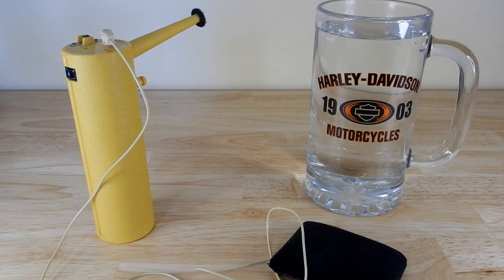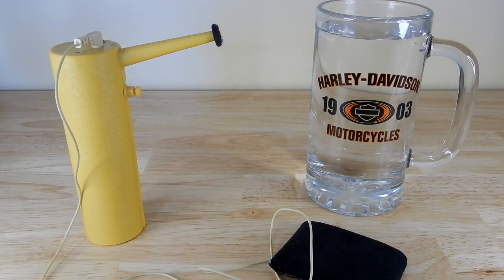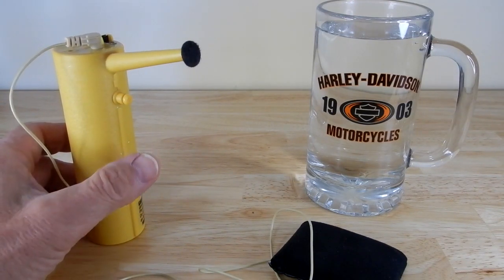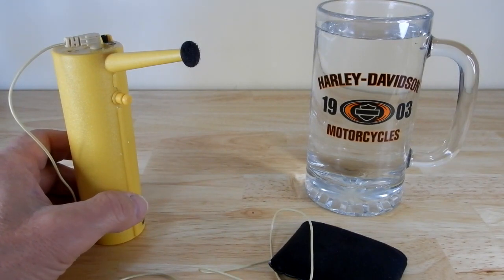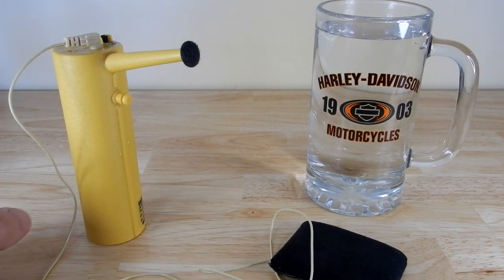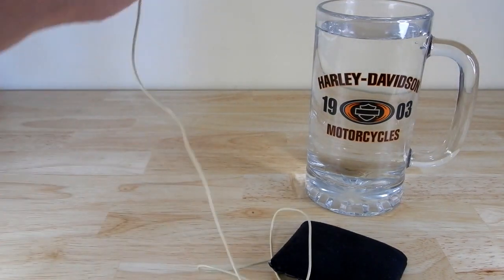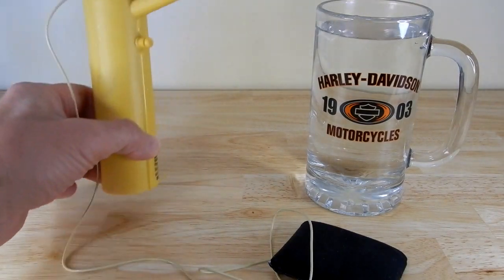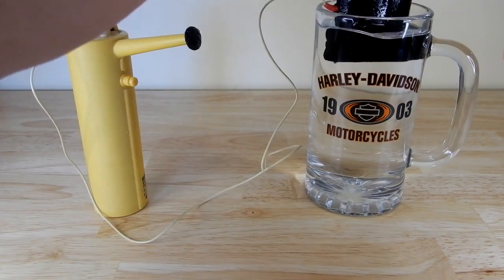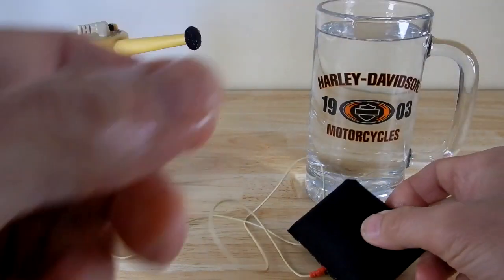When using this unit, it is imperative that you have not only the tip of the unit wet, but the pad also. If the tip starts to lose its strength, you'll need to dip it again. At the physical therapy place, the therapist had a little bit of water to continually dip the tip into to make sure it's properly conductive. So make sure the tip is wet, then soak the pad like that.